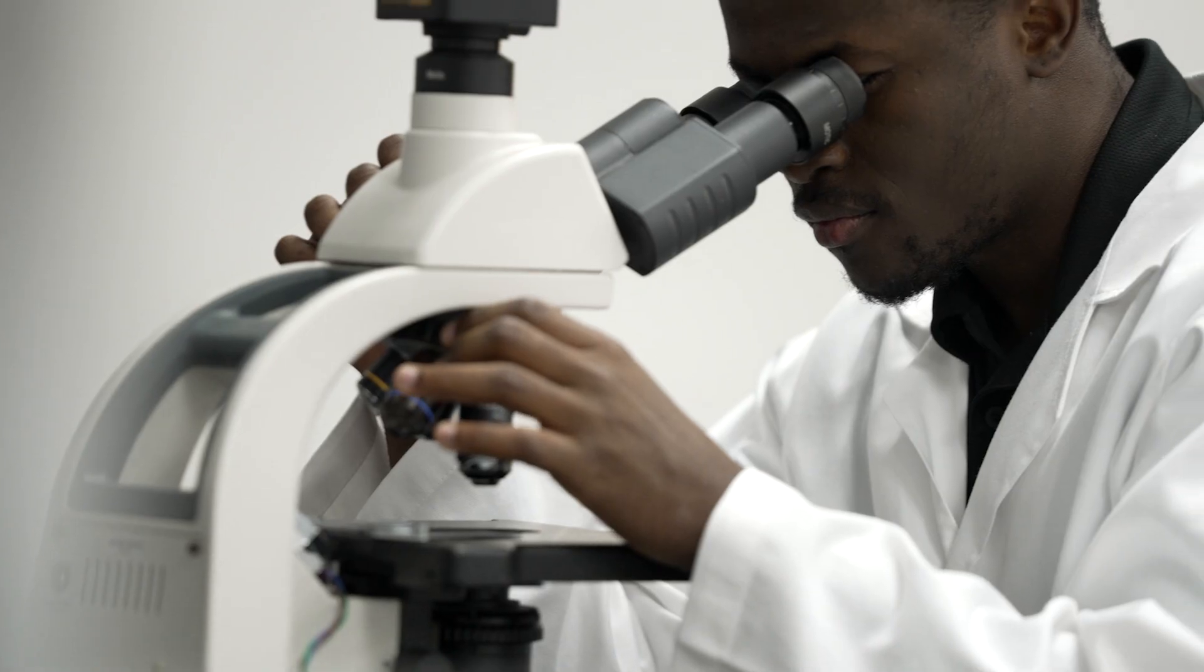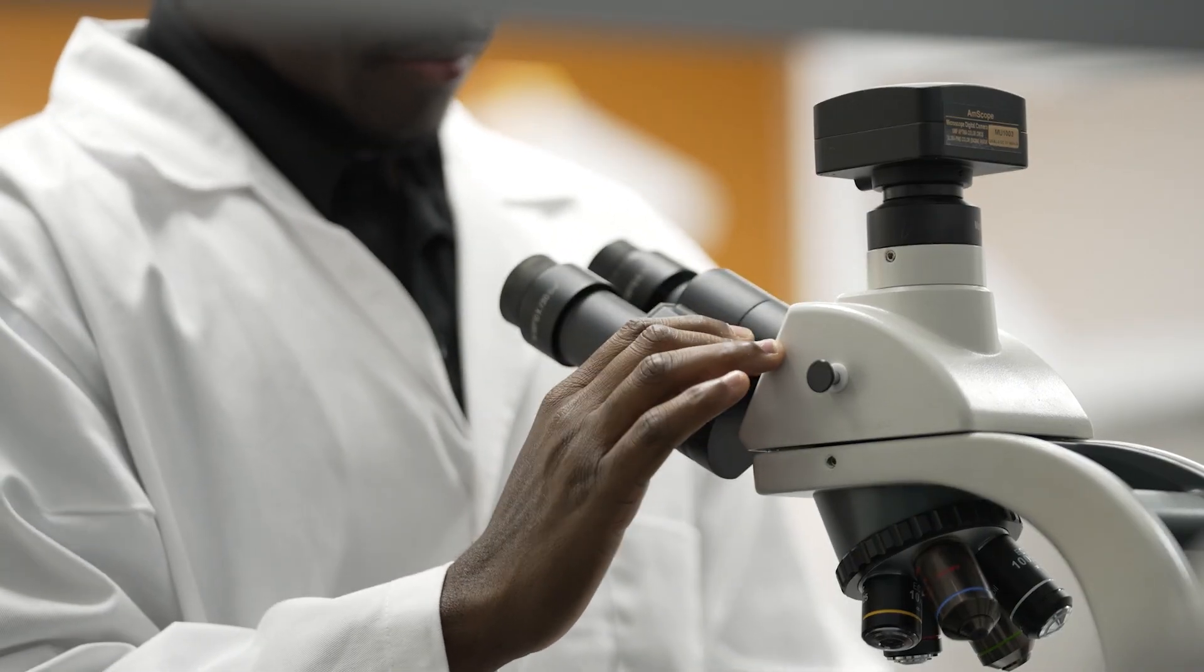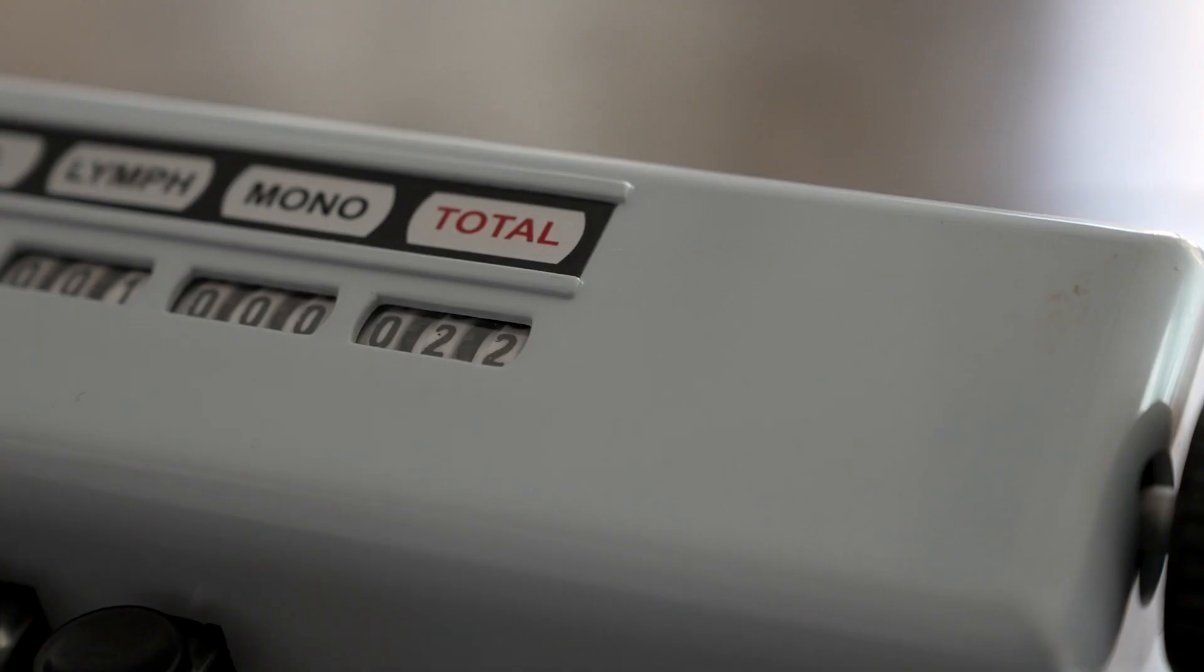When the eyes get tired, the brain gets tired, and so is the quality of work at 8 in the morning as good as 2 in the afternoon? They've got their hands working the microscope. The first time I saw that 50s-era cell counter, I couldn't believe it.